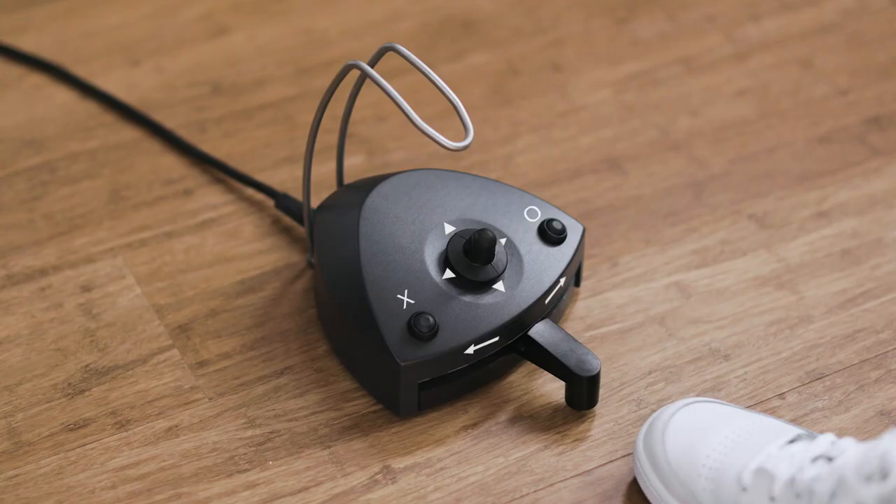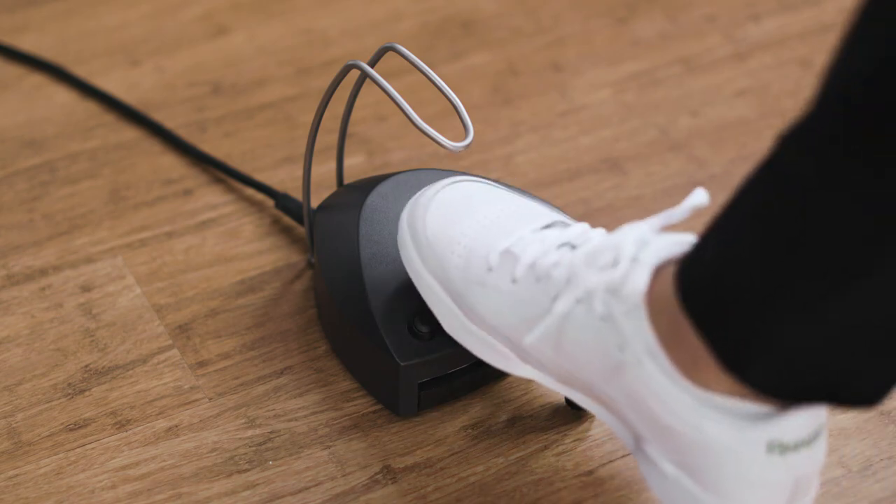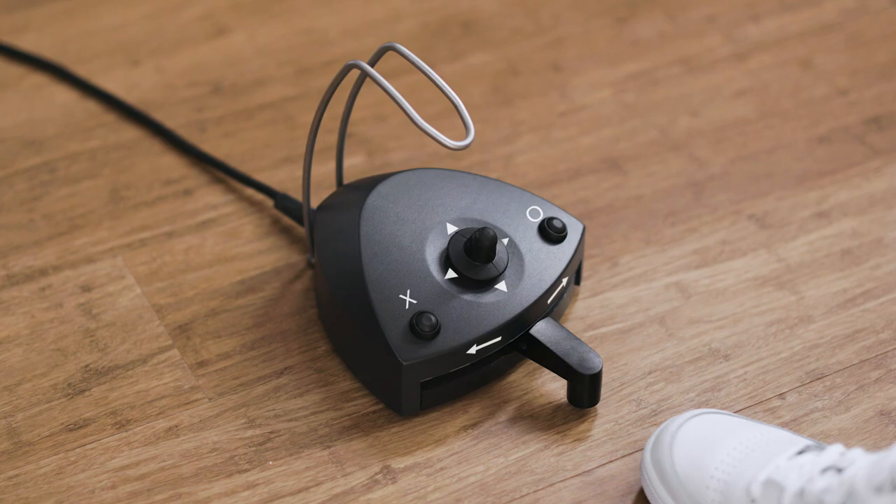You can choose between three levels of spray water. Applying the correct amount of spray water is essential — too little and you risk tissue necrosis, but too much and your field of vision is disrupted. The amount of water will increase when you move the joystick east, and will decrease when you move the joystick west.